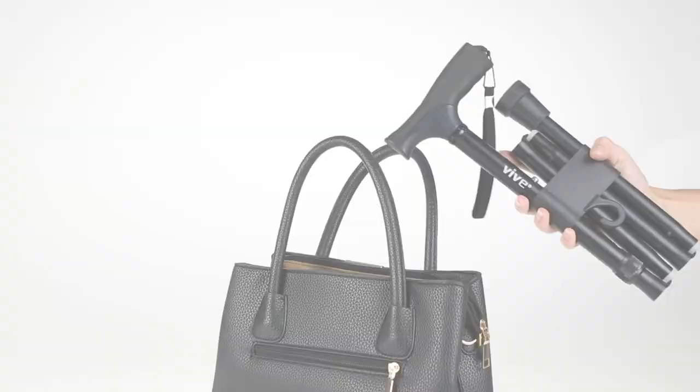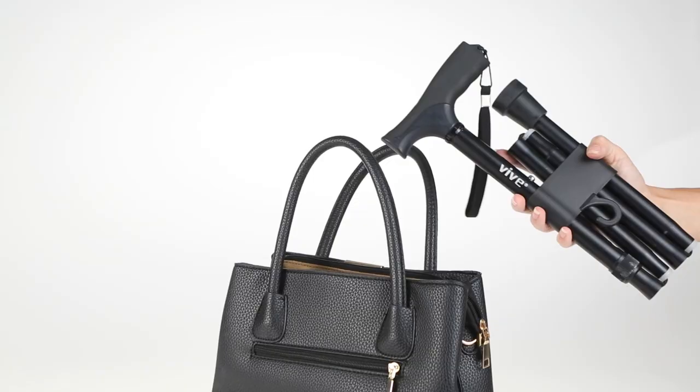When collapsed, you can easily fit the folding cane in a purse, briefcase, carry-on, or wheelchair bag, making it an essential travel item.